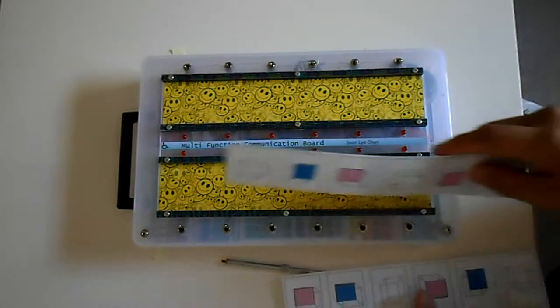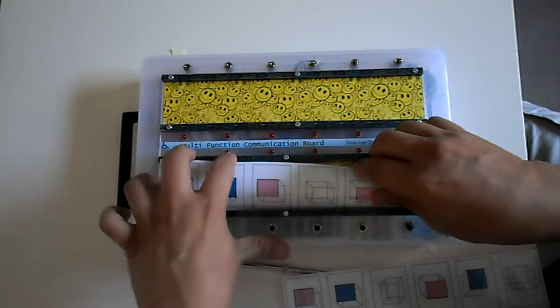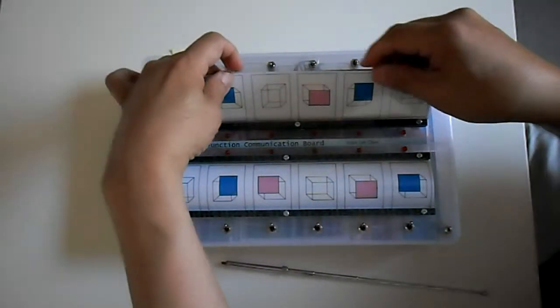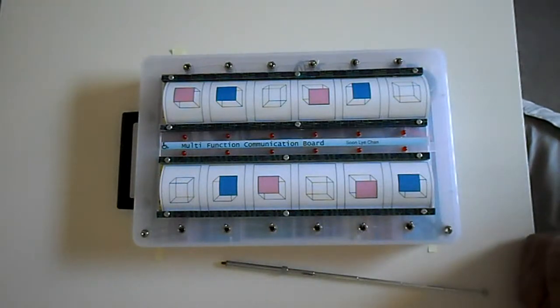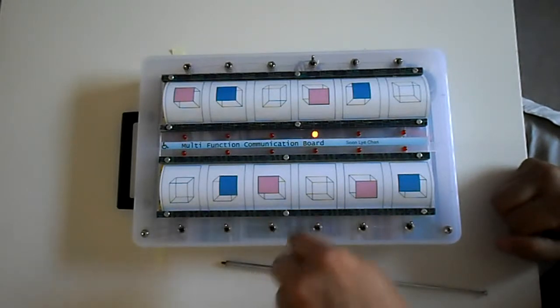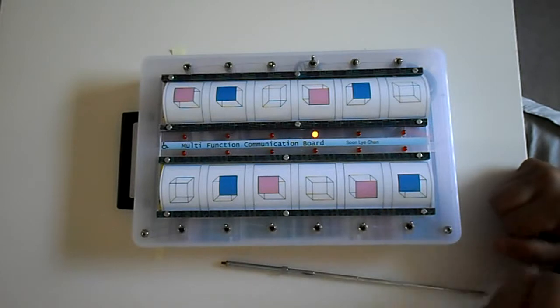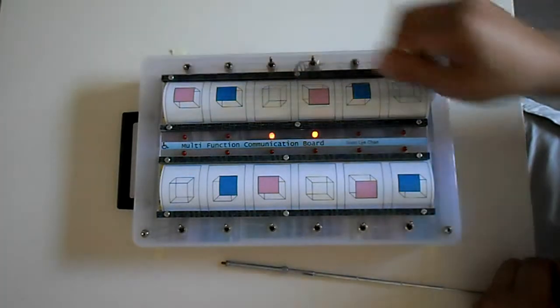And even for more advanced, or even adults for that matter, just by merely changing the graphics, it gets more complex, 3-dimensional images. And the same again, we can do that, and you pick which one matches that one. And here we get a bit more difficult. It's all to do with the ability of the child to discern the shapes and the color.